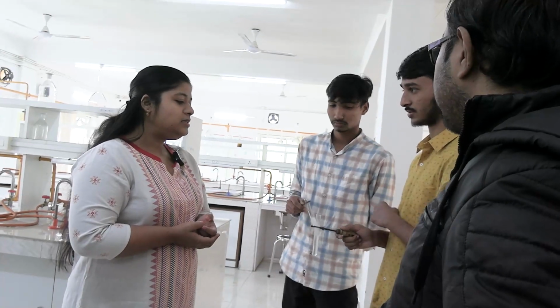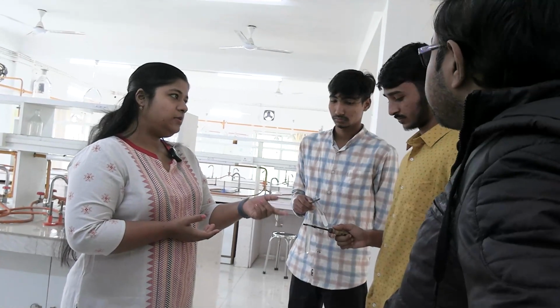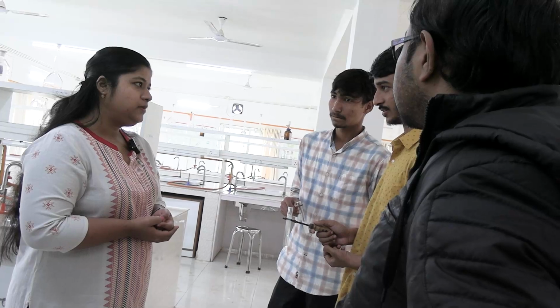What substances can give rise to cloudiness, white flocculum after heating, but will be dissolved after adding glacial acetic acid? Protein will not be dissolved. So which other substance will give white flocculum and then be dissolved by glacial acetic acid?